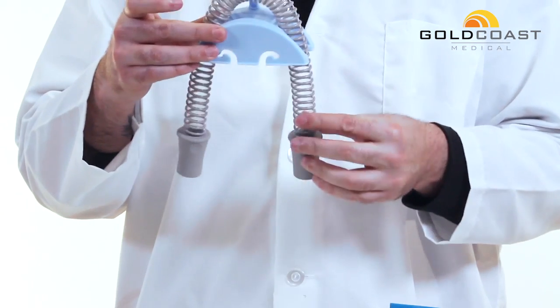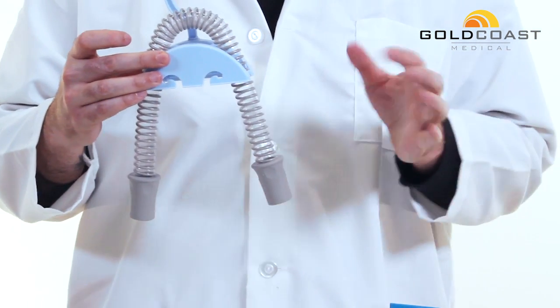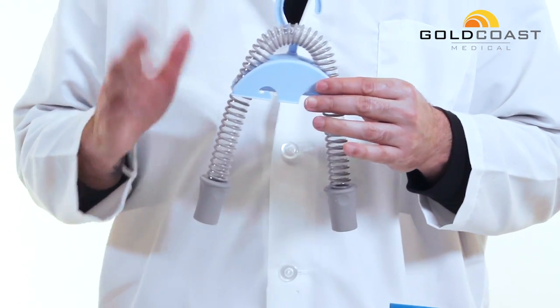Now, this is just a small hose for an example. This will also work with a regular standard six foot hose, or an eight foot hose, whatever you have.